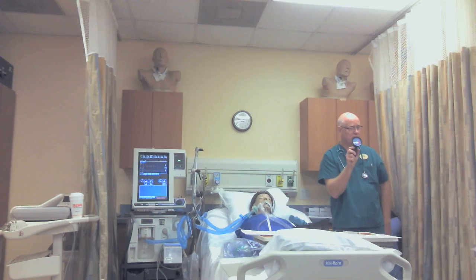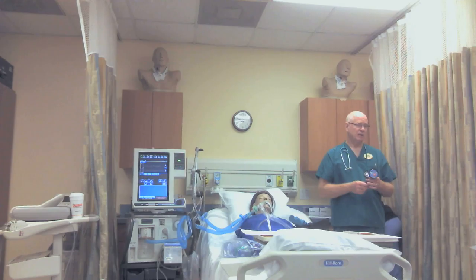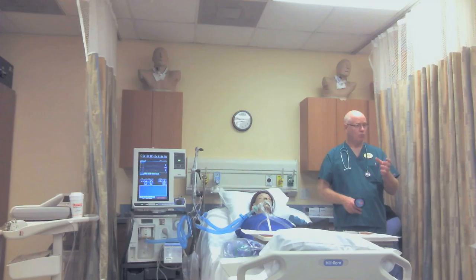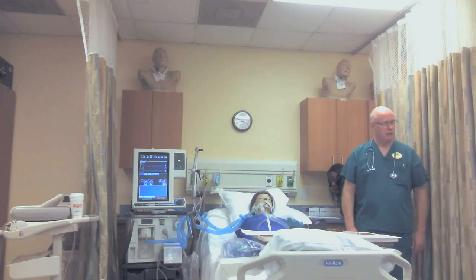Have you guys used these? No? Okay, I'm going to teach you how to use this. This is a cuff inflator. I can take this and measure the cuff pressure — it's a great tool. But these things are a few hundred dollars and they get lost all the time. Hospitals just get tired of replacing them, so the burden is on the staff to do a minimal occluding volume. Let me tell you: time and time again, we'll do a minimal occluding volume, then check with a cuff inflator, and you'll see how good it works. I'm going to teach you how to do the minimal occluding volume first.